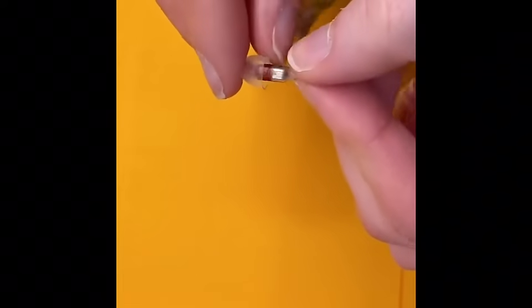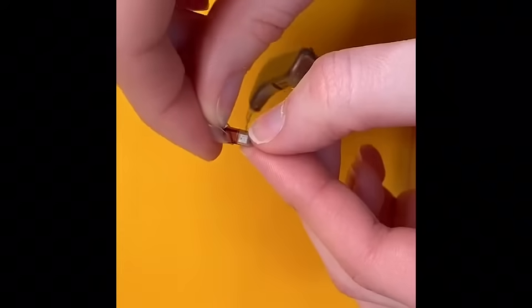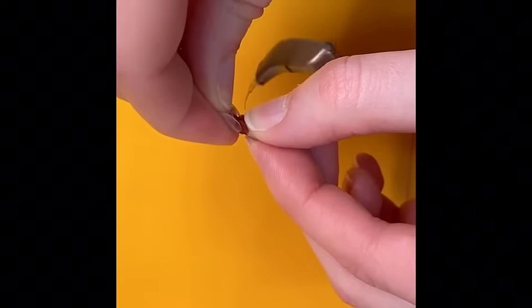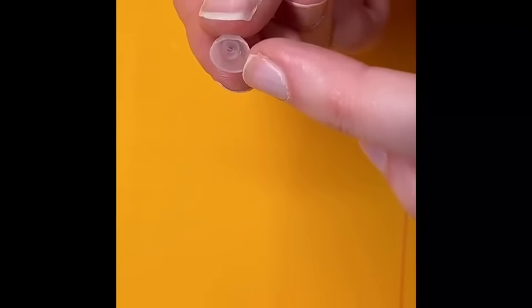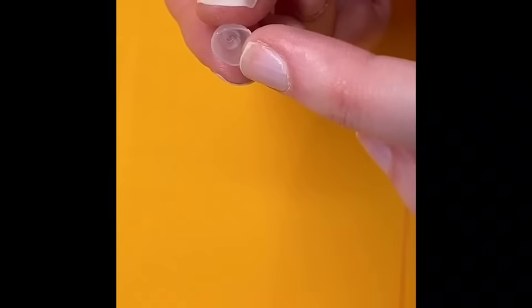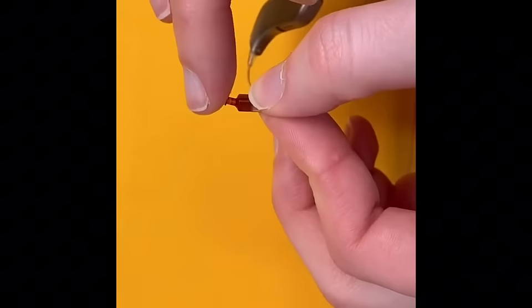To take the dome off, you can get your finger underneath it and pull from the middle until it pops off. The middle of the dome has a circle, and that's what we're going to push over the receiver.